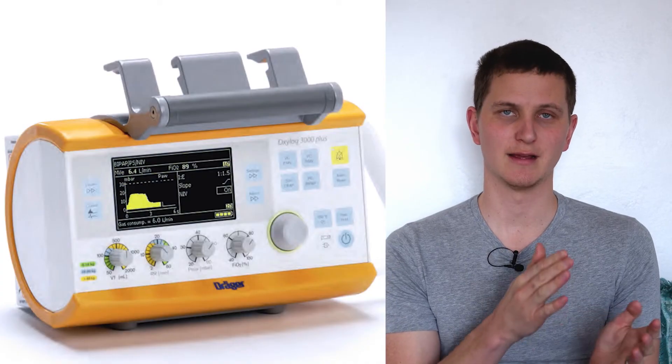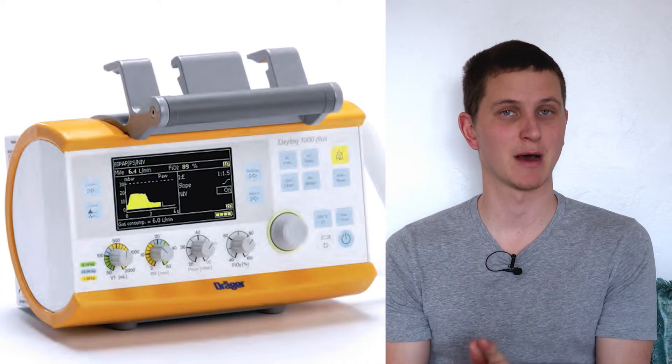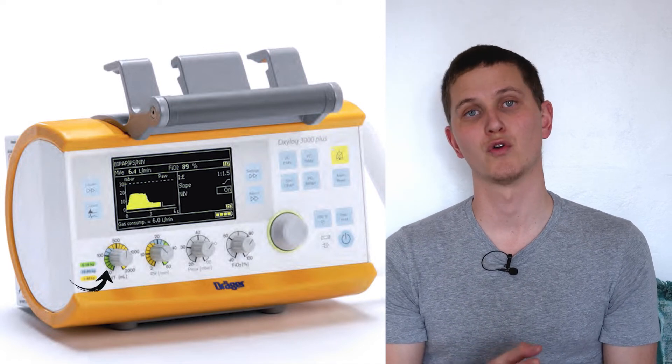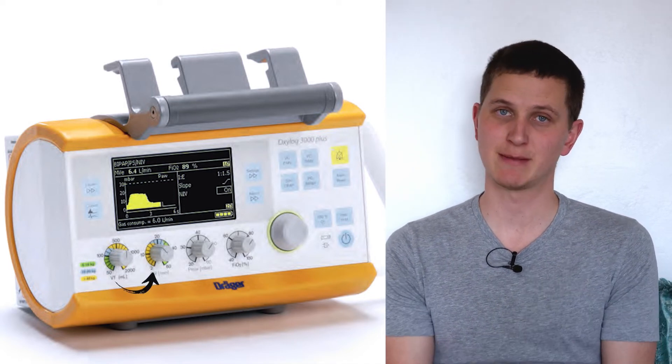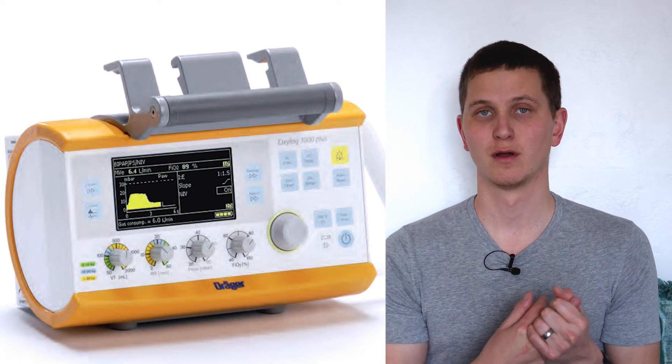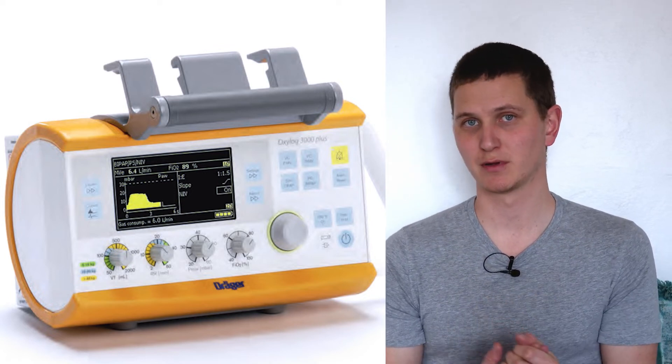CPAP is Continuous Positive Airway Pressure. It's when a patient is awake, maintaining their own airway, and we put a mask on their face and set what kind of pressures we're wanting. Once you put the Oxilog 3000 plus onto CPAP mode, you can no longer control your tidal volumes or your respiratory rate — on CPAP you can only control your Pmax, your FiO2, and your PEEP.